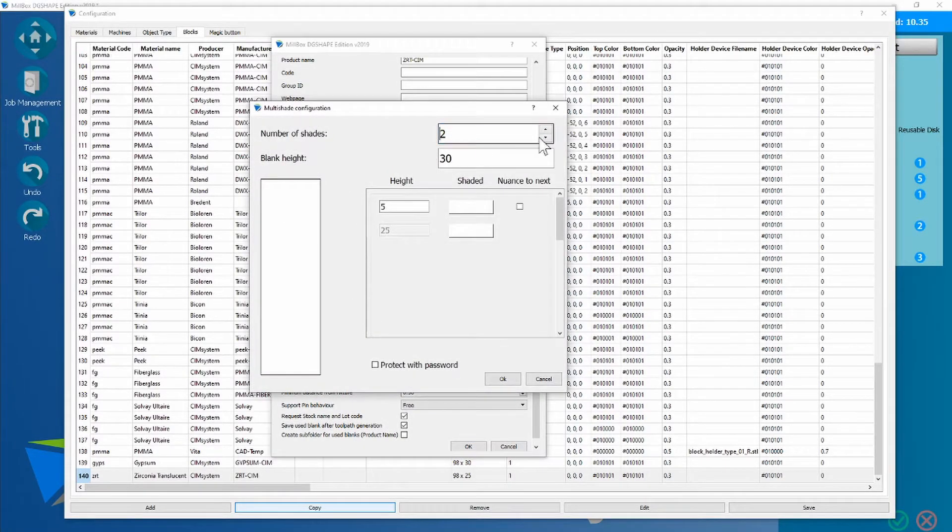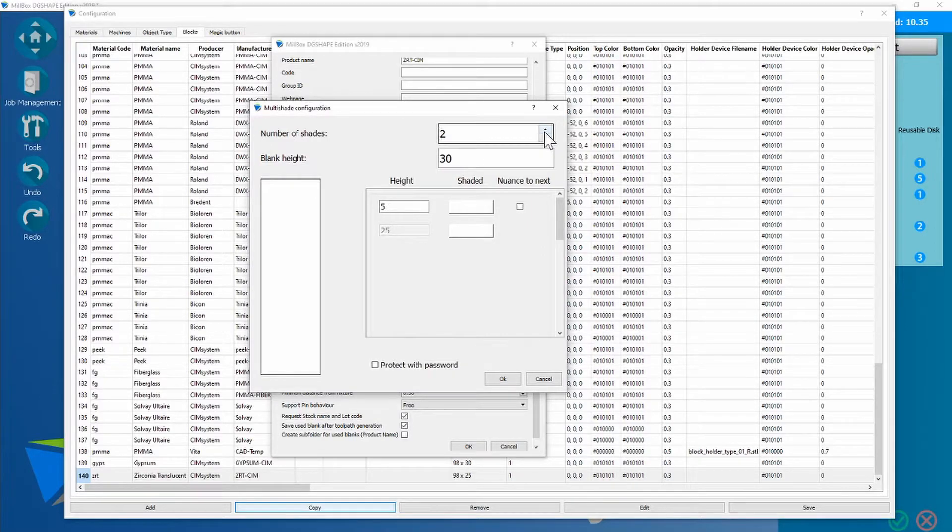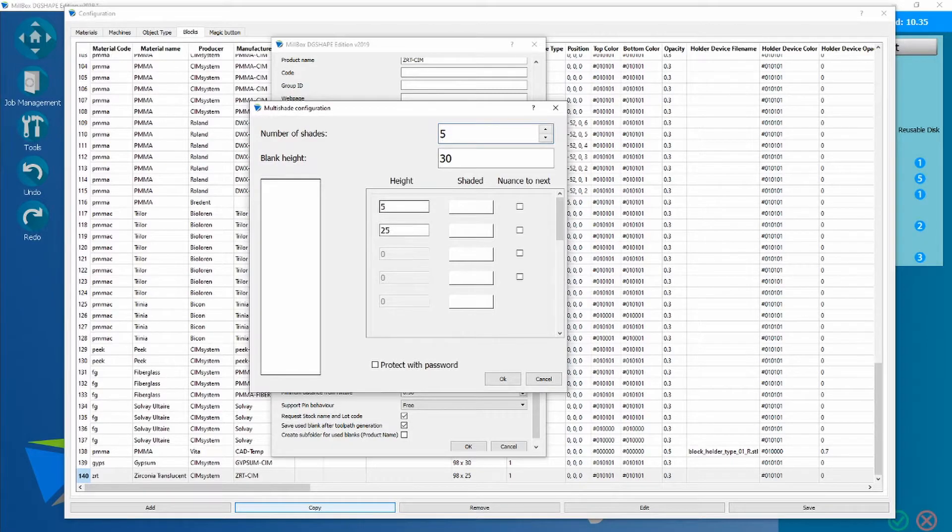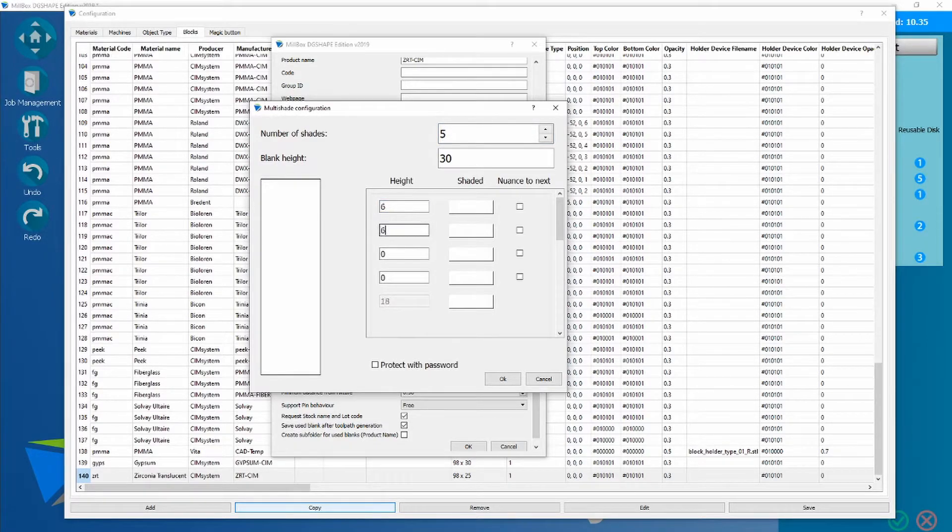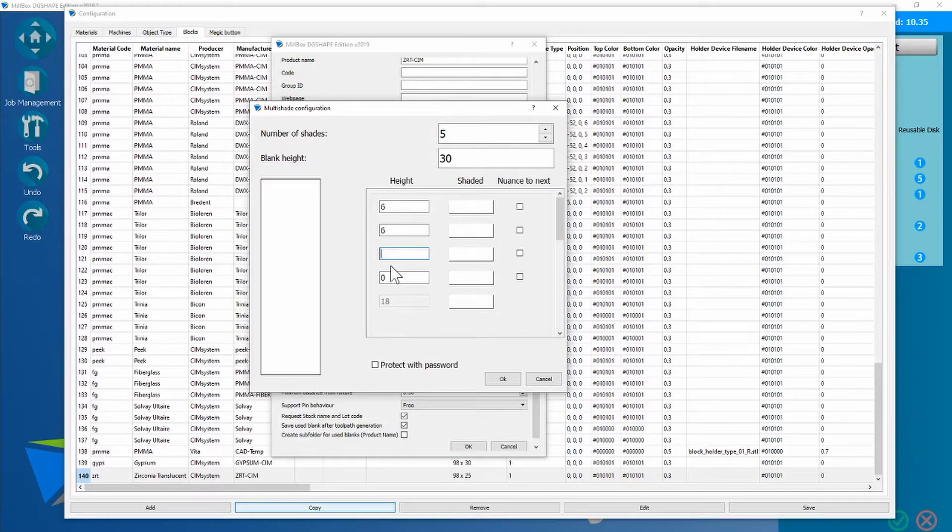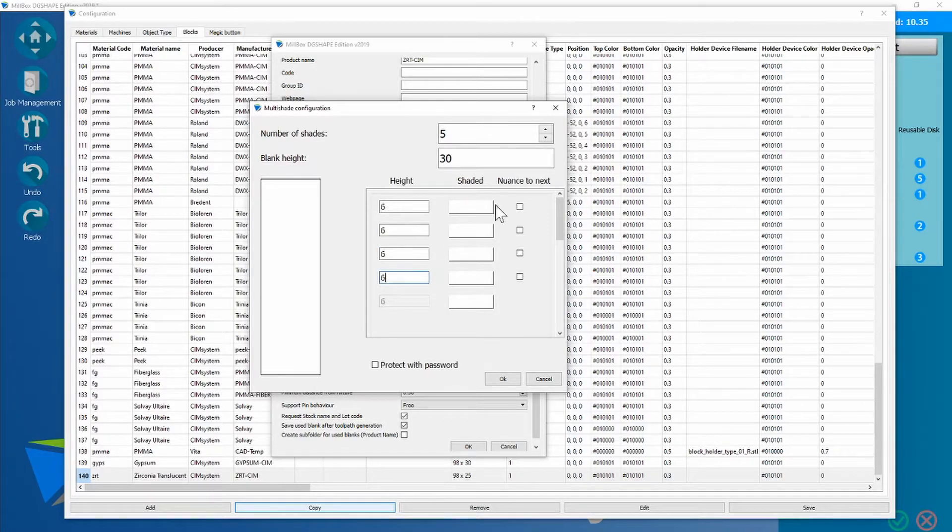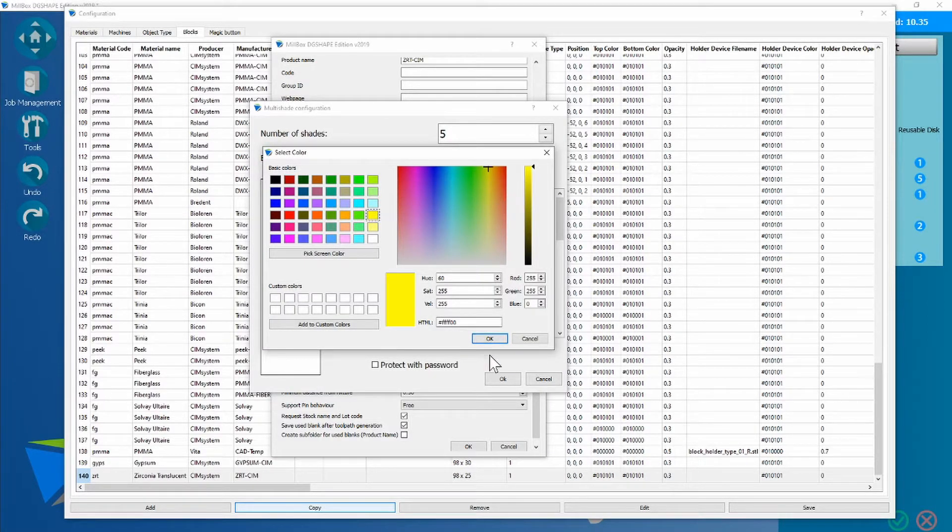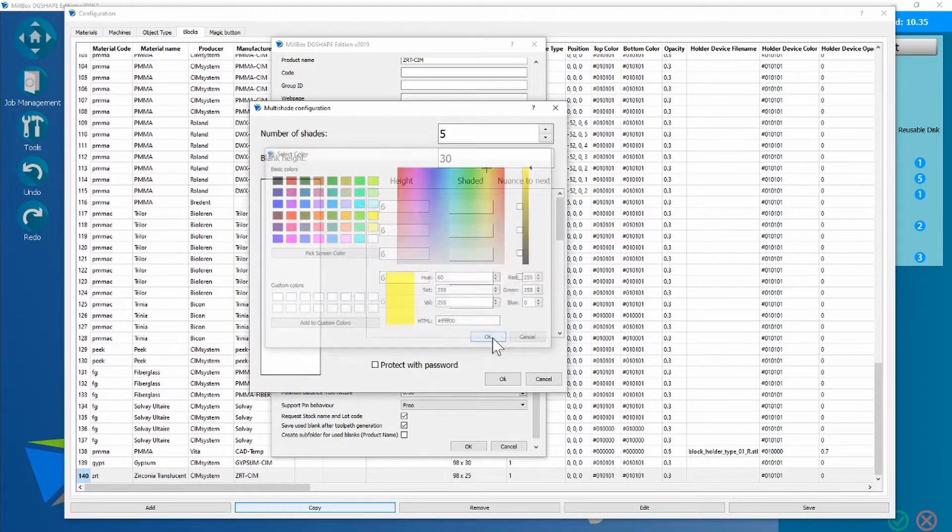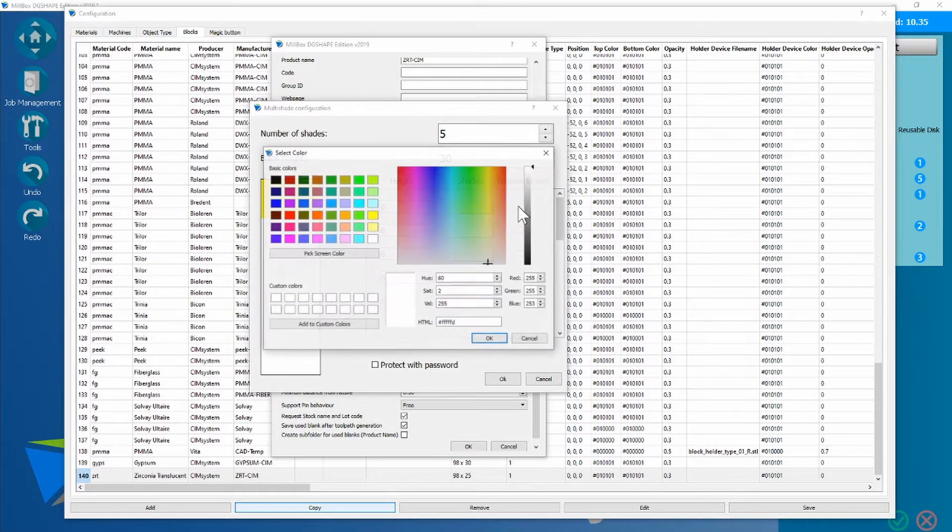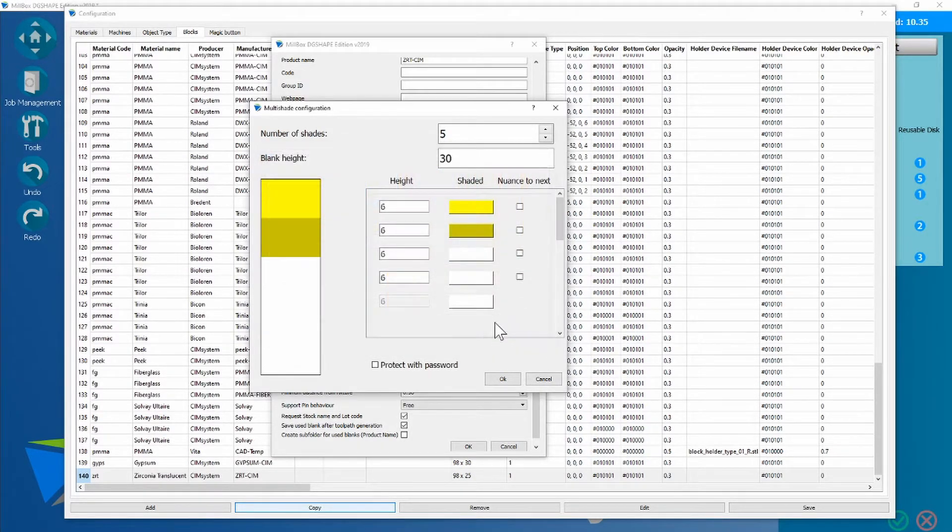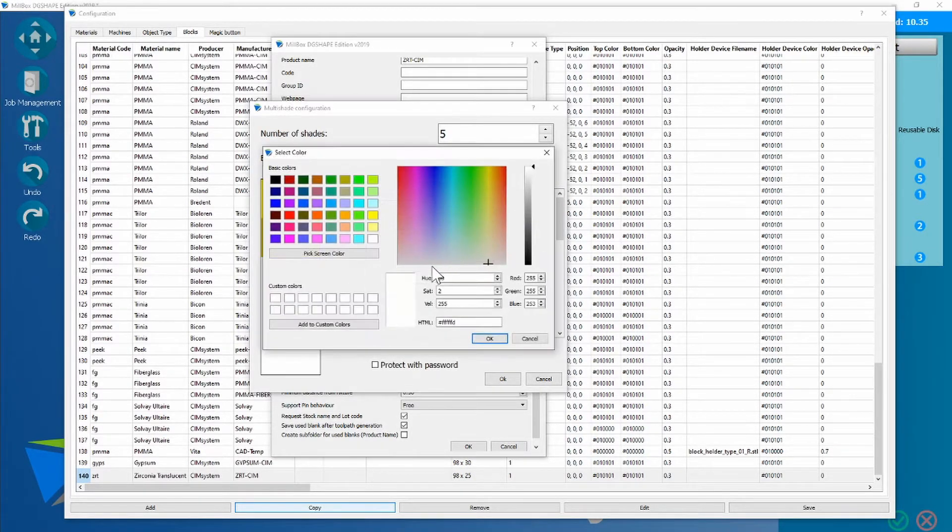So if your disk had five layers according to the manufacturer, you could then make each layer equal parts, and then create as many colors as you would like, into equal parts.